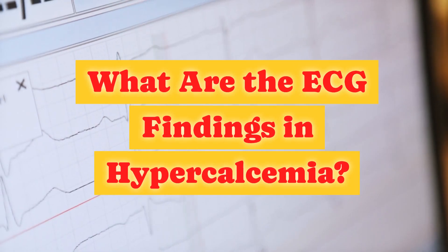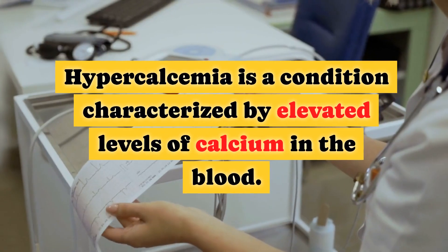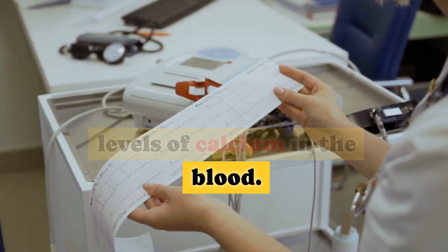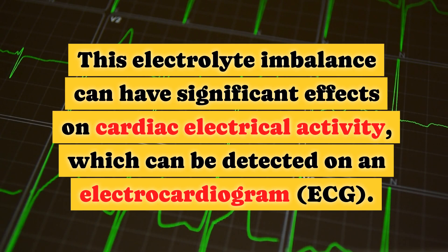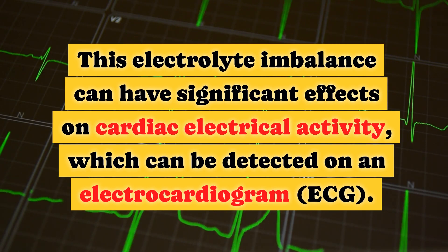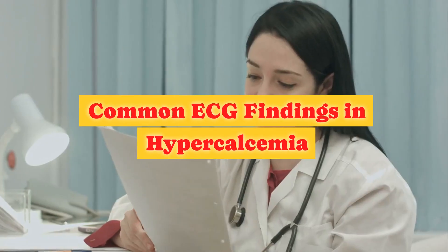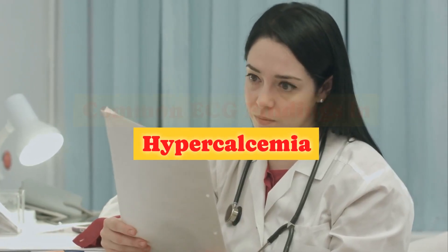What are the ECG findings in hypercalcemia? Hypercalcemia is a condition characterized by elevated levels of calcium in the blood. This electrolyte imbalance can have significant effects on cardiac electrical activity, which can be detected on an electrocardiogram (ECG). Common ECG findings in hypercalcemia include the following.